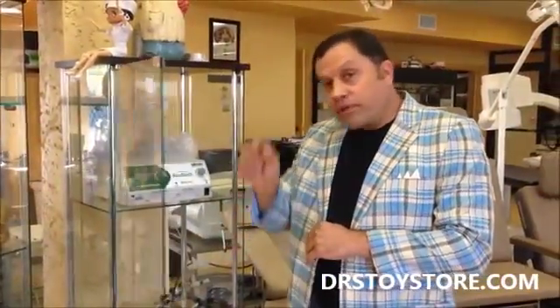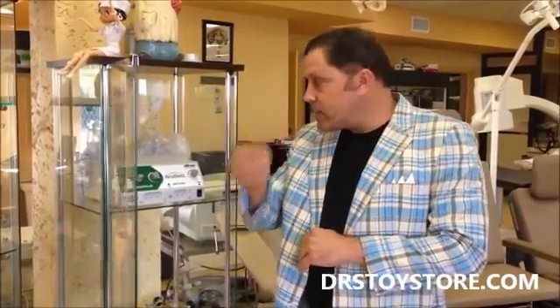They've got bipolar and monopolar. The difference is bipolar would be two pieces touching together, and monopolar is just one, zapping out direct. These are refurbished.